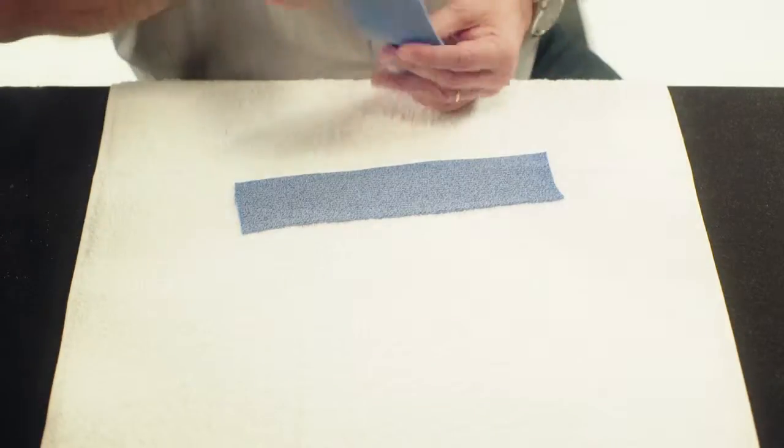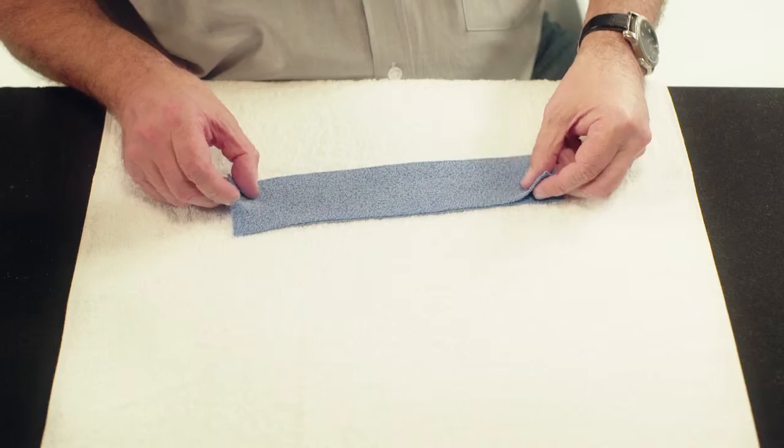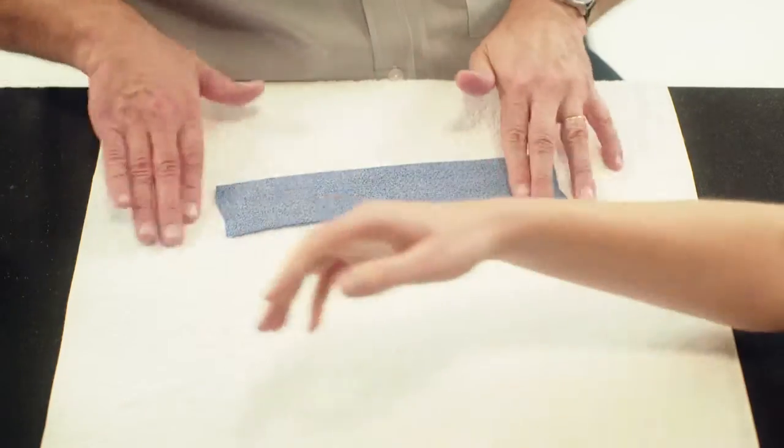Heat both pieces at the same time. Press the two pieces onto each other creating one thicker strip.